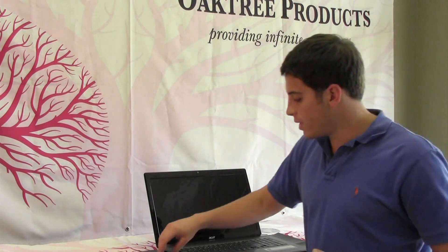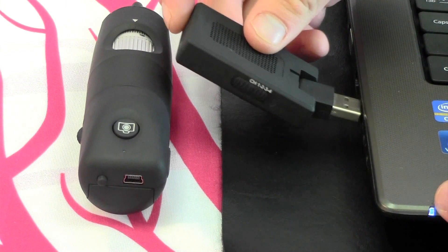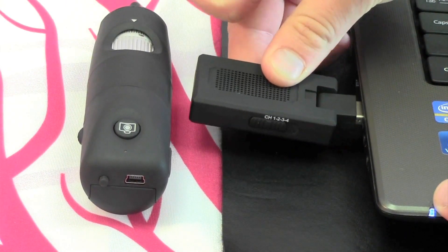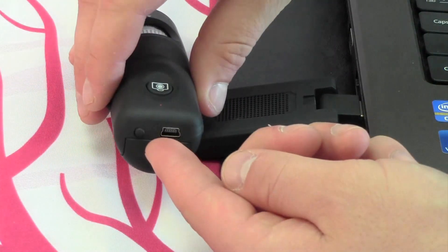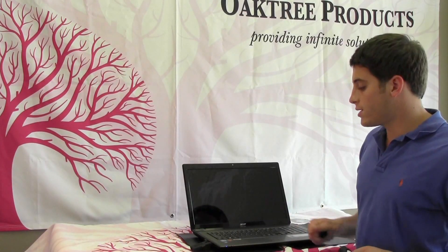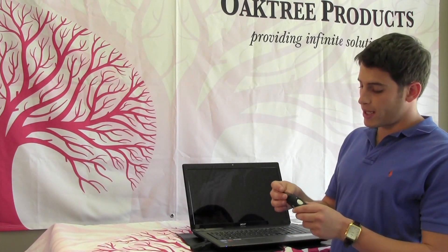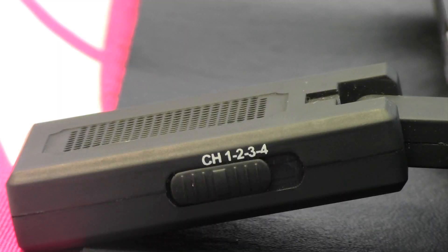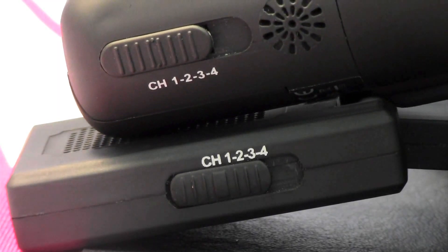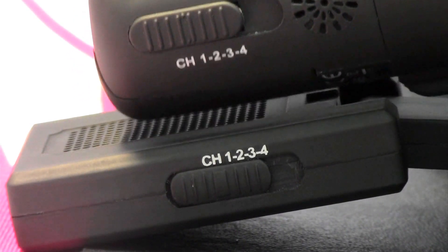Once you've done that, take the wireless receiver and plug it into your computer's USB port, and turn the otoscope on by pressing the button in the back. Now that we've hooked up our wireless receiver and turned our otoscope on, we want to attach the Firefly-specific specula to our otoscope. Make sure that it's flush and all the way on. Then turn the otoscope to the side and make sure that both channels for the receiver and the otoscope are aligned.